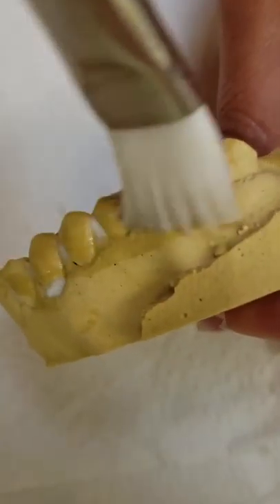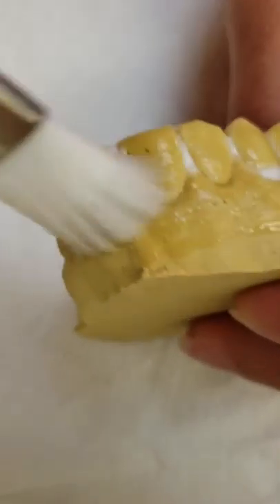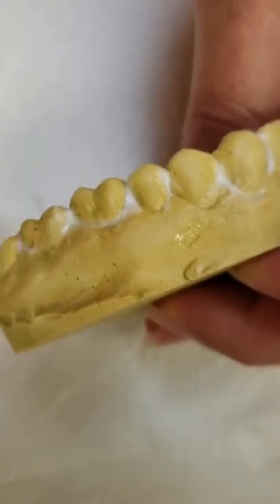I just dumped some more liquid foil onto the model, painting it all the way around. You'll see the color of the model change when it's saturated enough with the liquid foil. I'm going to add a little bit more — you don't want to have it too thick.